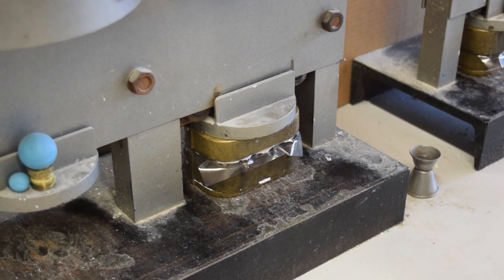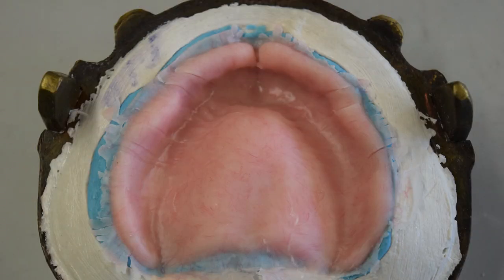The temperature of the water bath activates the bonding monomer in the acrylic, hardening it and embedding the teeth directly into the acrylic base.